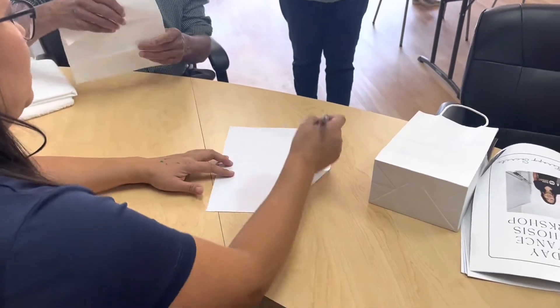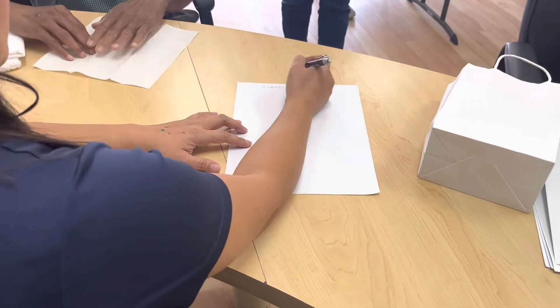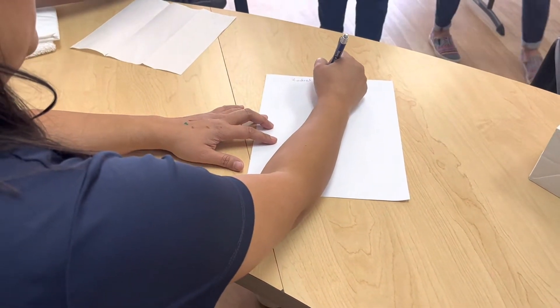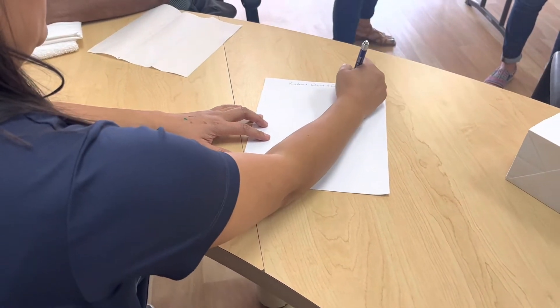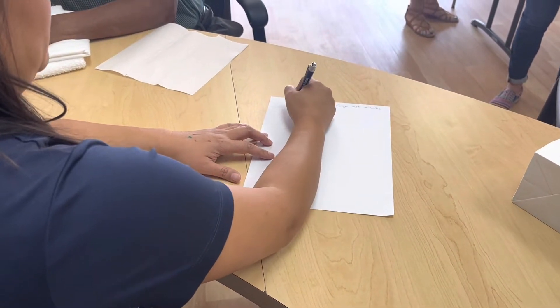The first one we're going to make is a radial wrist and finger extension orthosis. This is going to be your dynamic orthosis.